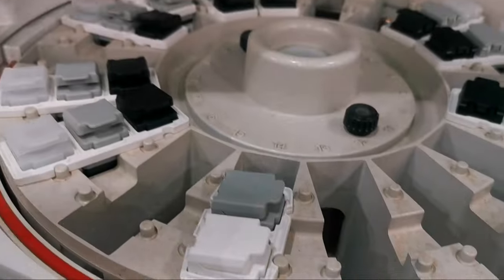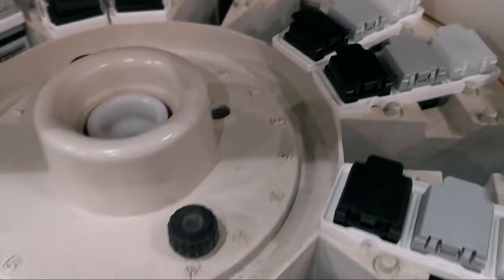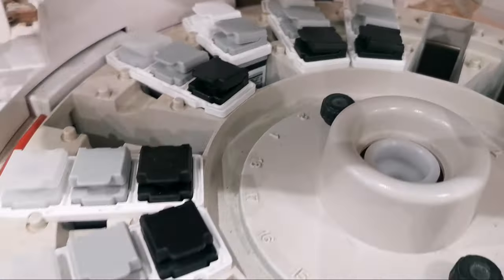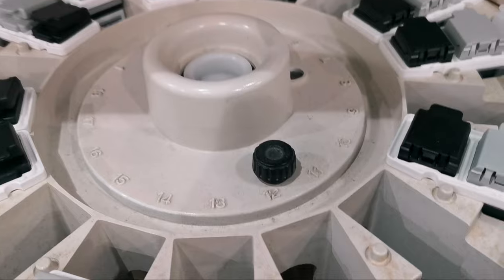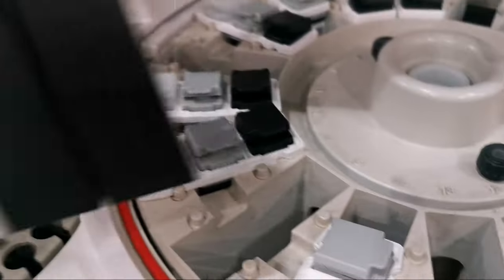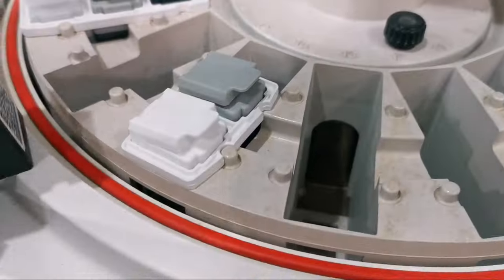For the Rotor Position Number, we are going to select an empty position for the reagent that we are going to register. Let's choose number 13.